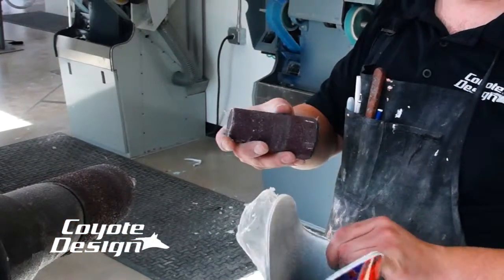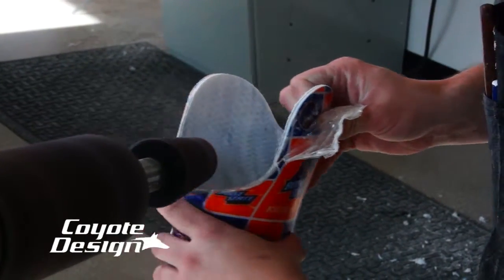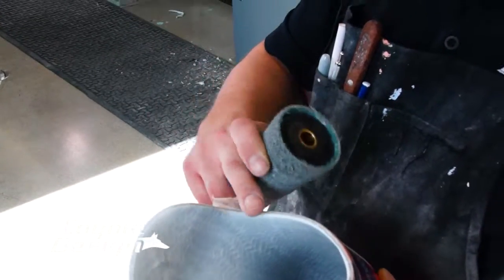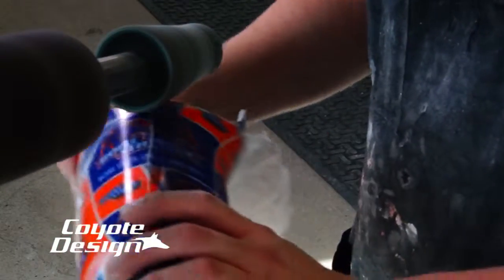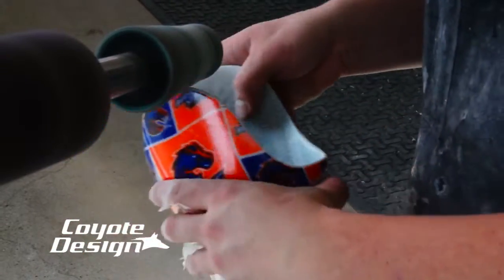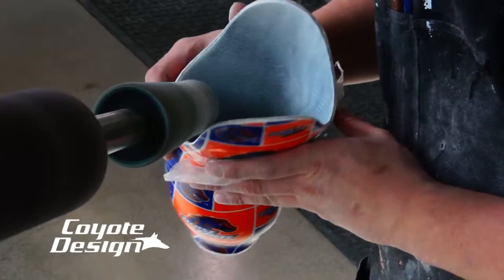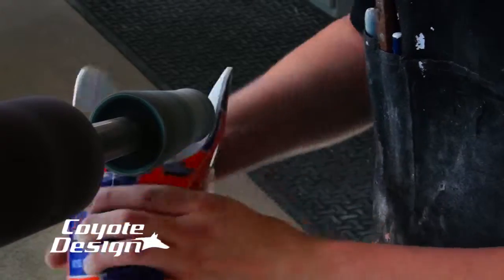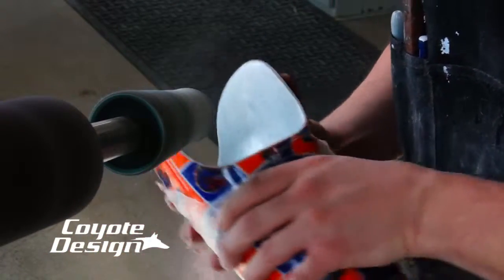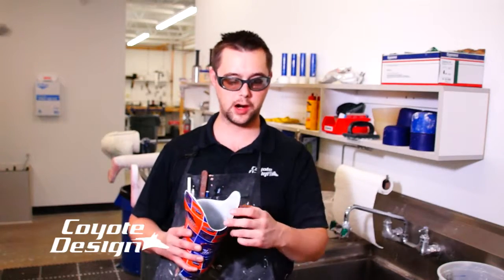I use the roughest cone you can — go ahead and take that down to your trim lines. Then you can take a medium buffing cone, which is a blue buffing cone, and start with the outside edge, kind of rounding it off. Then go back in with that cone and go outside all the way around — buff it, then go inside. You're trying to create a smooth round edge, not a square edge. A square edge is going to be sharp.